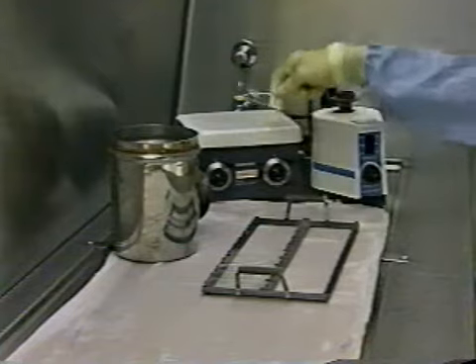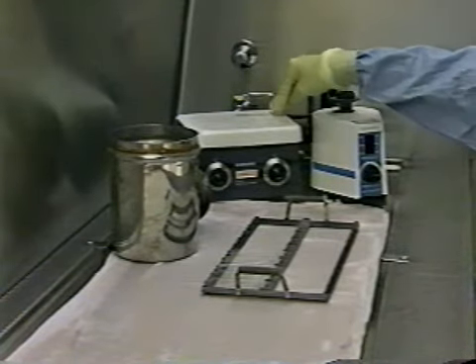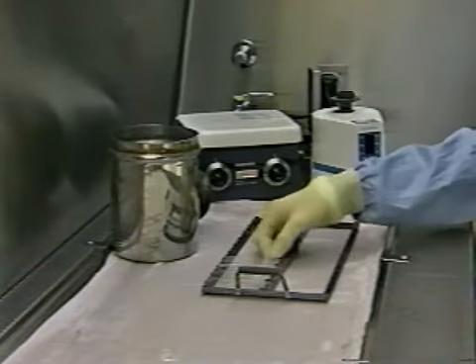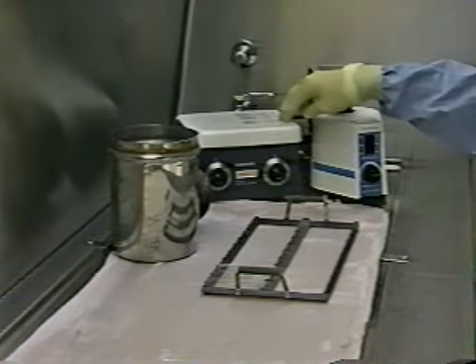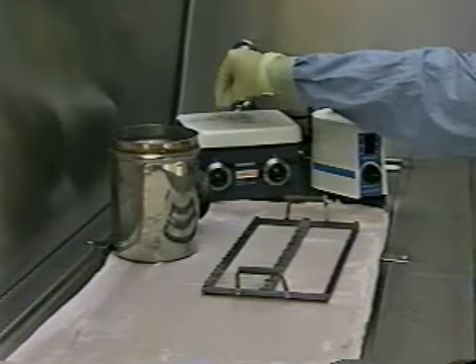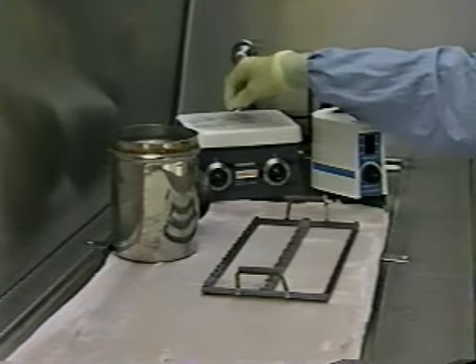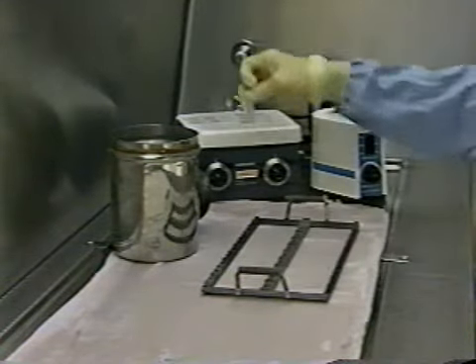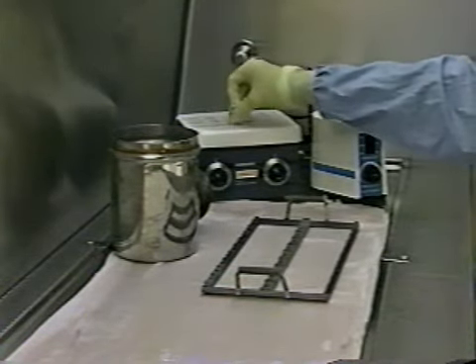When making smears, it is important to air dry them and place them on a slide warmer within the BSC for fixation. Heat fixing, even for 2 hours, does not necessarily kill the mycobacteria, nor does it guarantee that organisms will stay attached to the slide. Not only may they be alive, but they may be capable of cross-contaminating other slides.